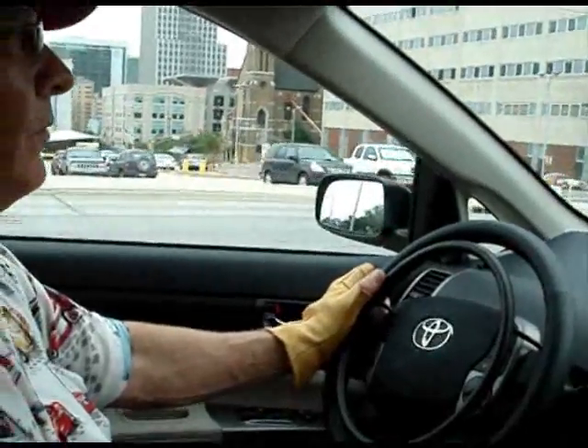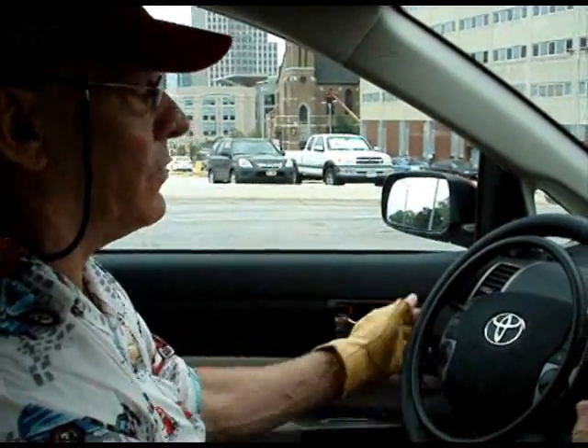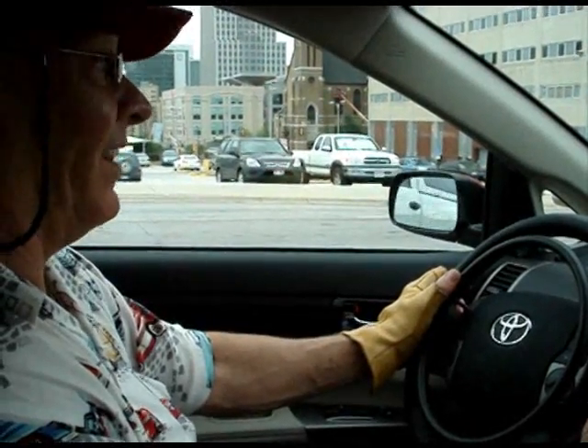My eyes are on the road instead of having my one shoulder drop to use the hand controls to brake and push away from my body, which changes my seating position. I'm in the same exact seating position at all times, and I like that very much.